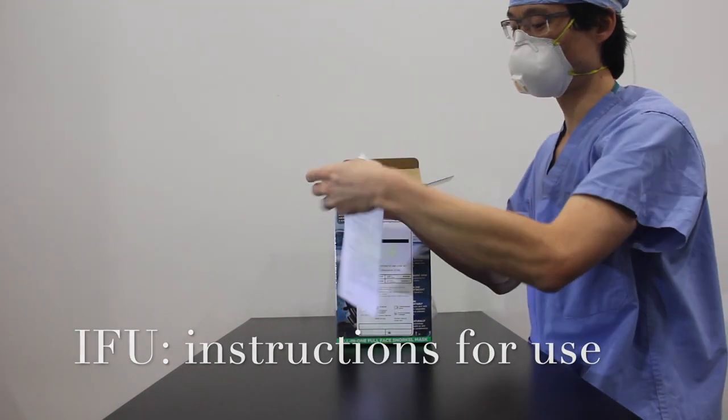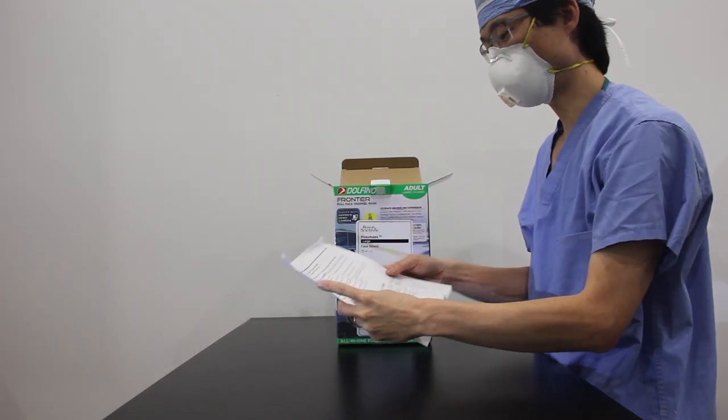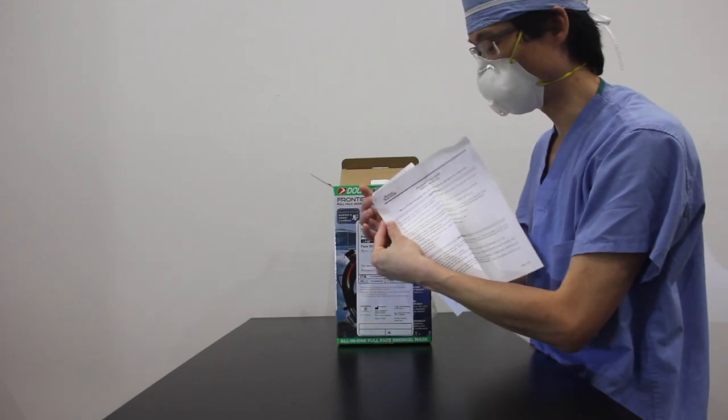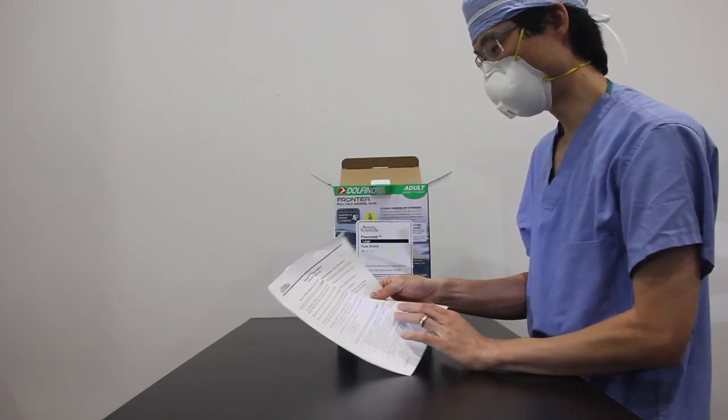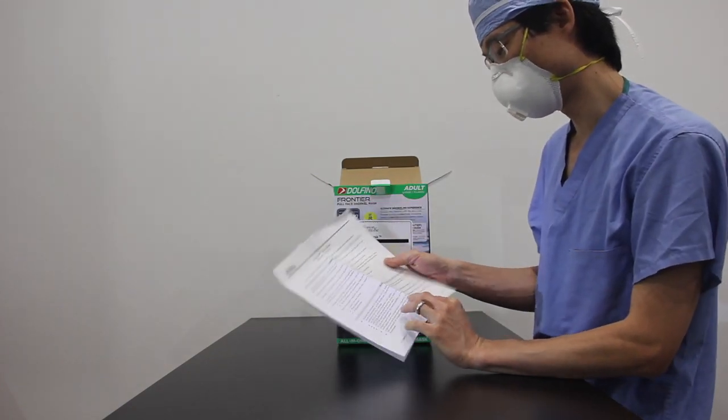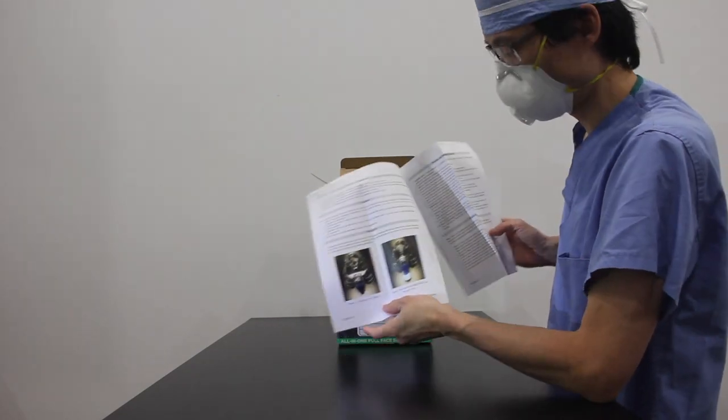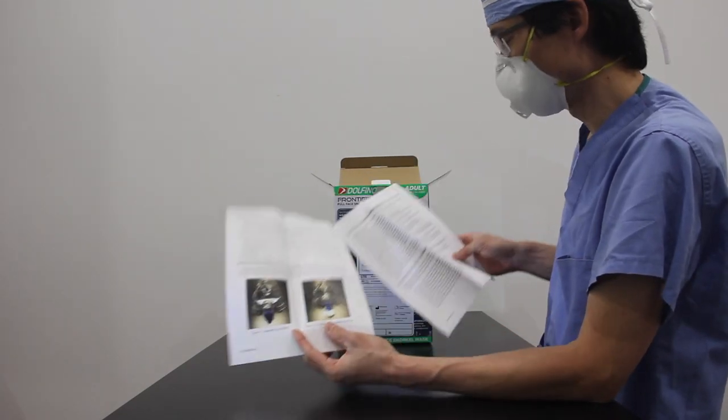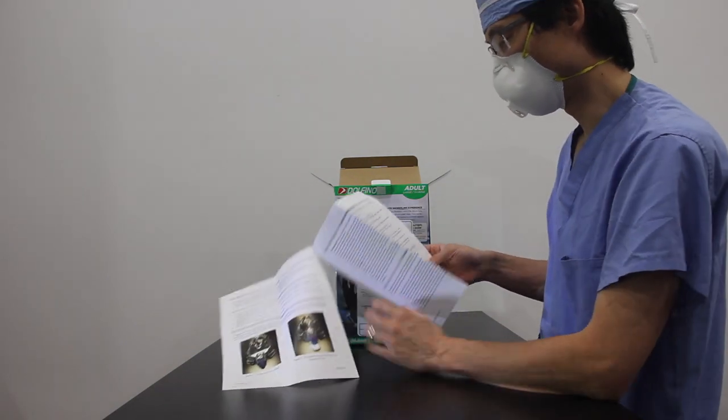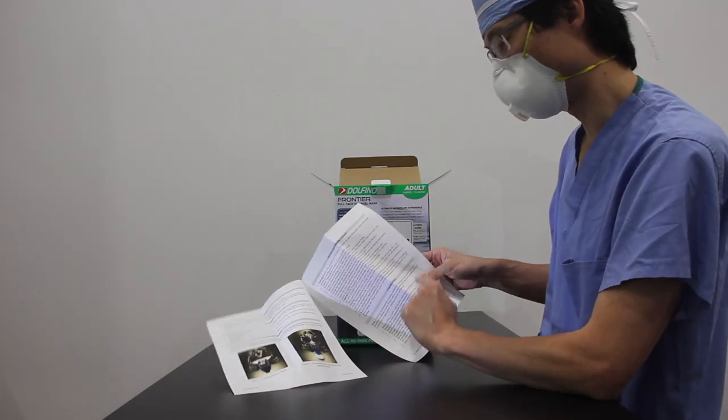We got little instructions for use. It's kind of nice. Boston Scientific once again labeled on it. And it's got an intended use section, a warning section, a caution section, nice pictures of how to put the filter on, a donning and doffing section, and a cleaning section.